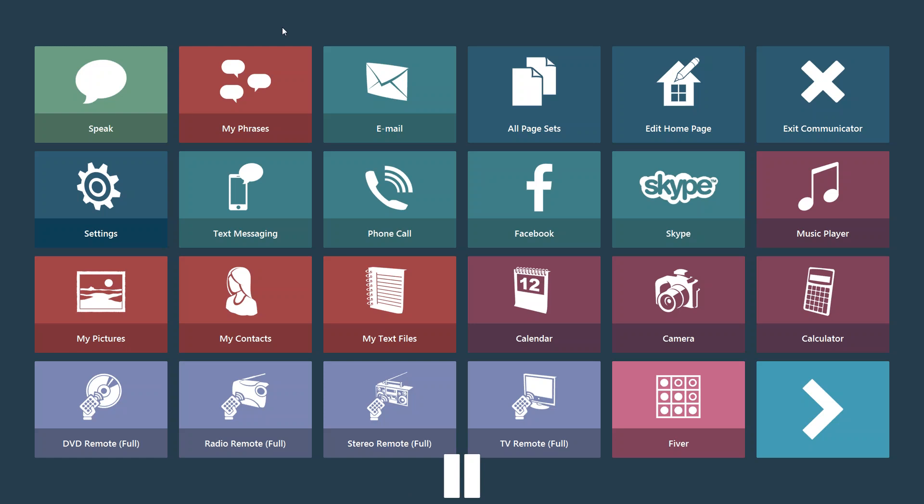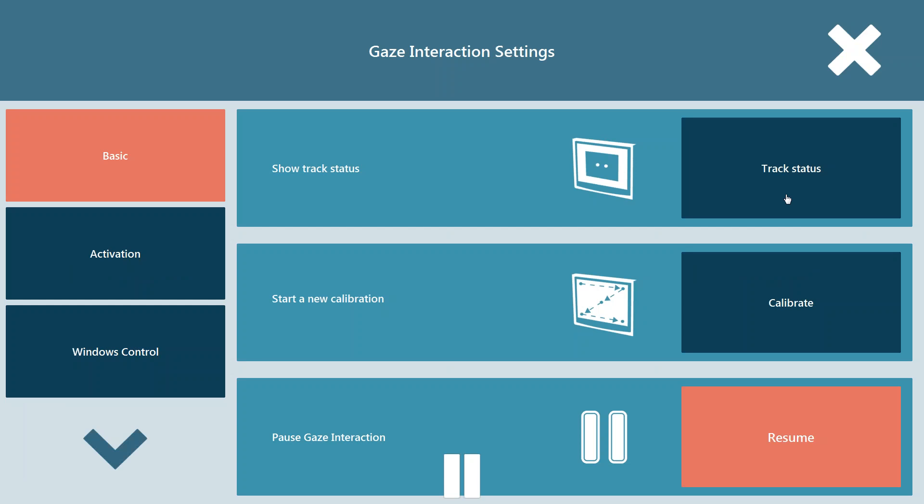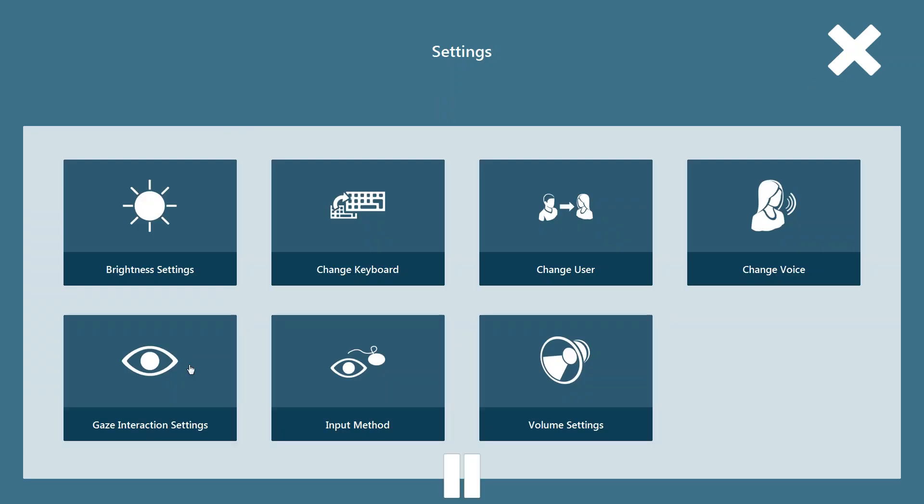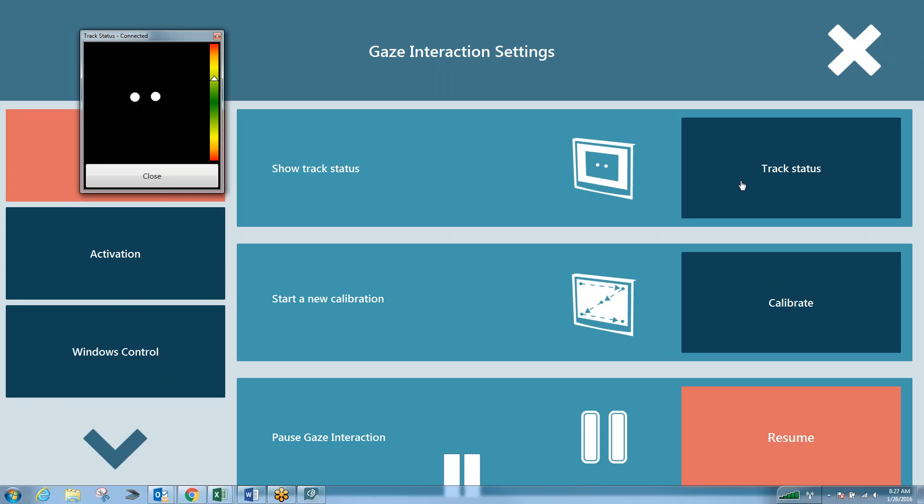When you hit those two dots it will bring you up the track status box. I don't have those two dots on my computer but what I can do is go into my settings and into my gaze interaction settings and I can hit track status from here as well. So we have multiple ways of getting to track status box. As you set this up for your customer or your loved one what you really want to make sure you're doing is making sure that the calibration is solid and that we're putting them in a proper position every time to be successful with the device. So as long as we're in this location where we can see both white circles, the triangle is in the green, we should be in a pretty good location. If you have any questions please don't hesitate to contact us. Thanks and have a great day.